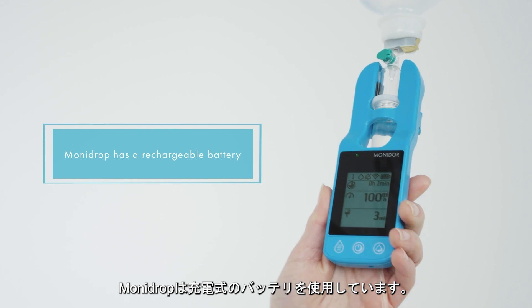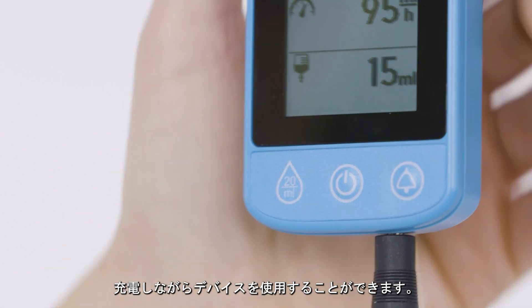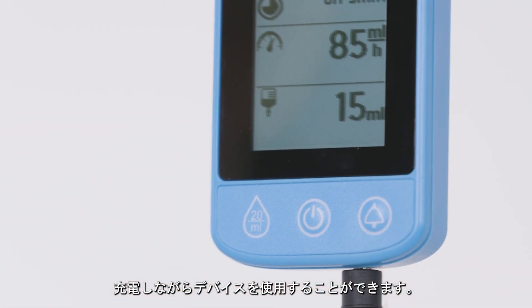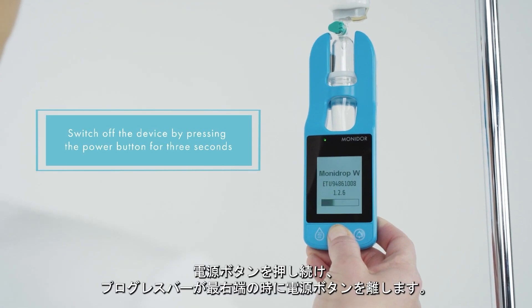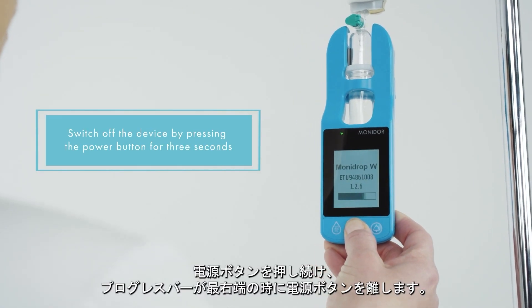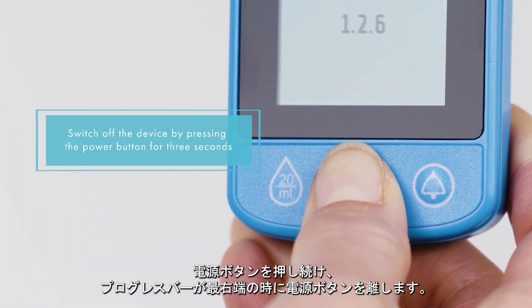MoniDrop has a rechargeable battery and can also be used while charging. Switch off the device by pressing the power button for three seconds.